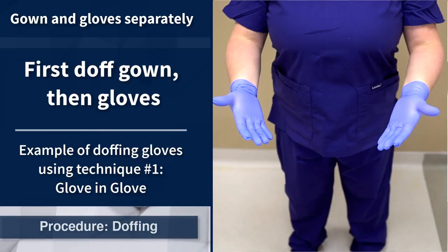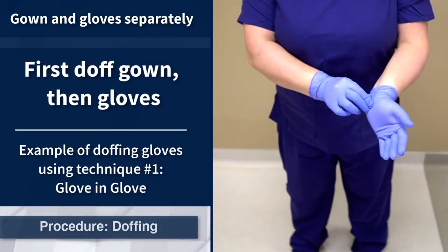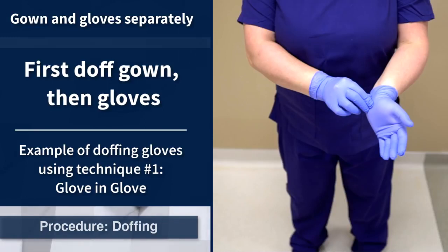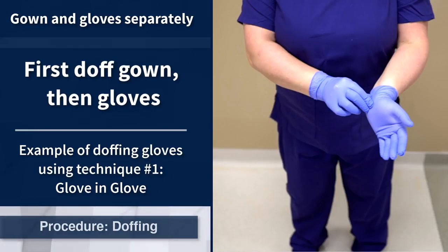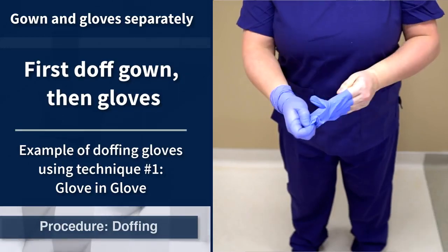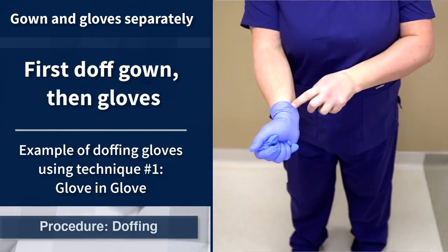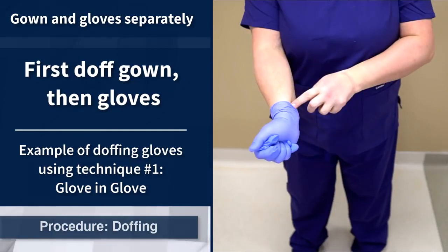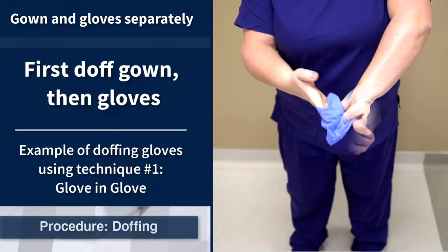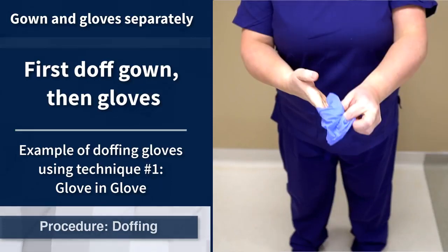There are several methods for glove removal that can be utilized, such as the glove-in-glove technique. The glove-in-glove technique is performed by pinching the glove of one hand at the wrist with the forefinger and thumb of the other hand and pulling the glove off while turning it inside out. Hold the removed glove in the gloved hand. Slide the forefinger of the non-gloved hand into the wrist of the other glove and pull it off, making sure to only touch the inside of the glove and that the glove turns inside out and envelops the other glove.